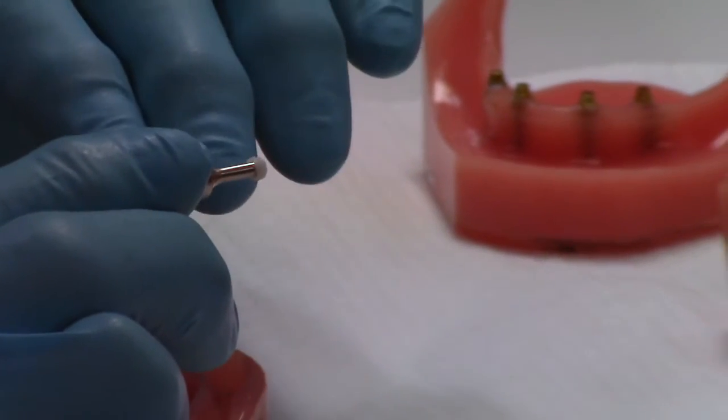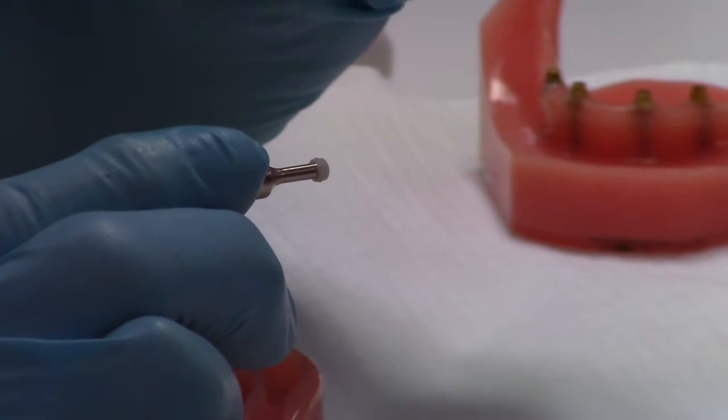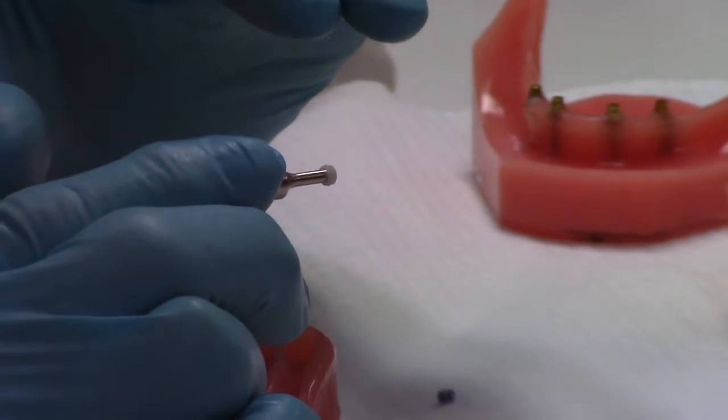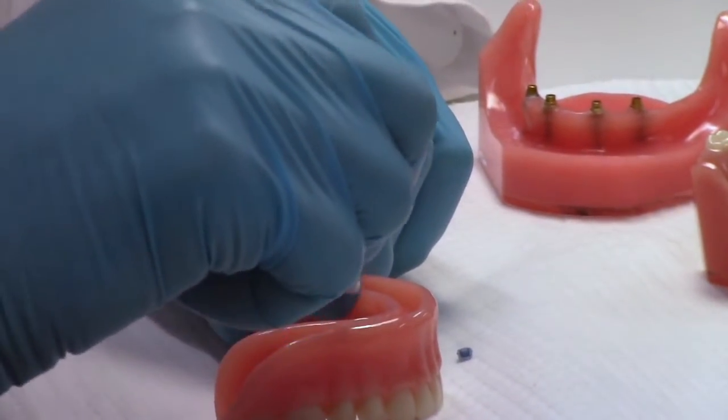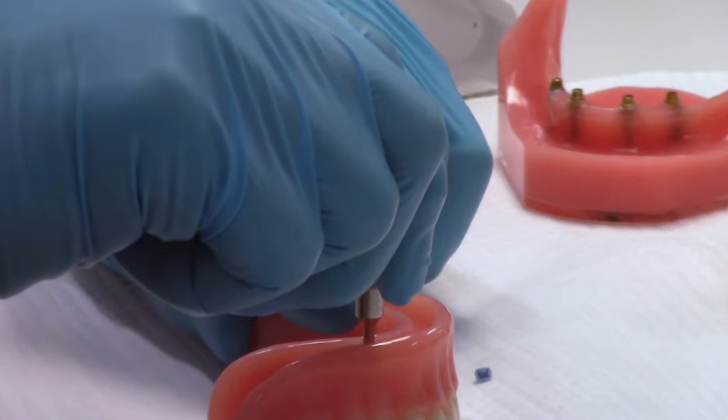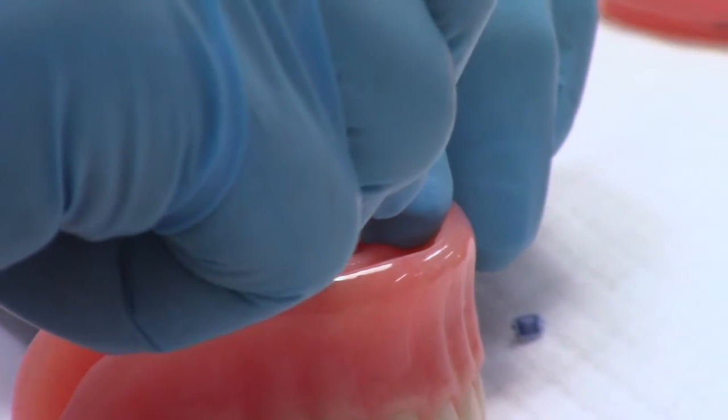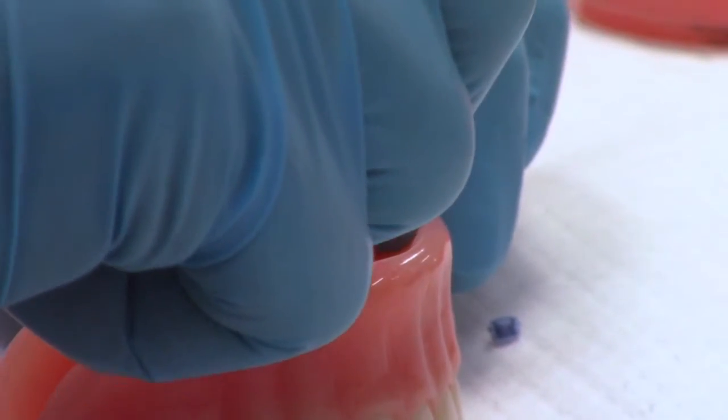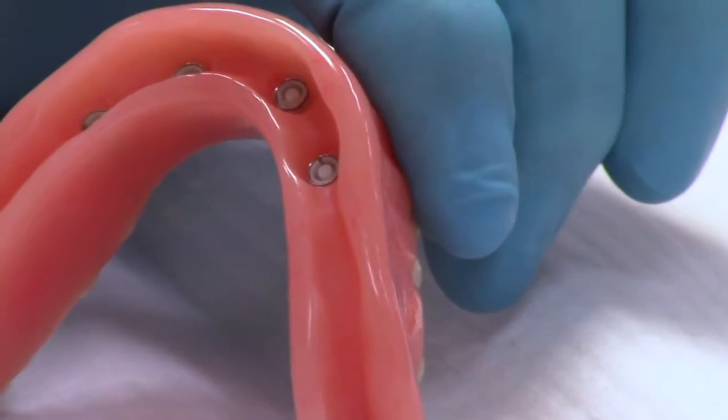The amount of retention as we go from one color to the next is varied by, not just the color, but because of the diameter of the center button. So I'm going to try to keep my hands out of the way so you can see this. I'm going to put it straight in. You've got a good view of that. And I'm just going to push. And if you'll listen, you can hear it pop. Did you hear that little snap? So now we have it in. And that's all there is to it.